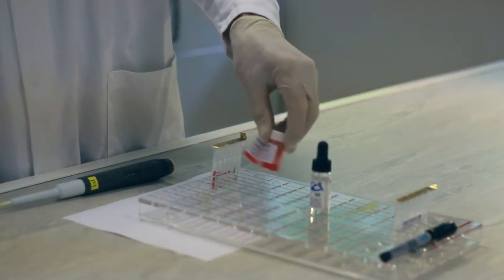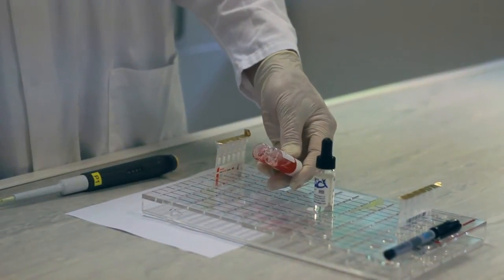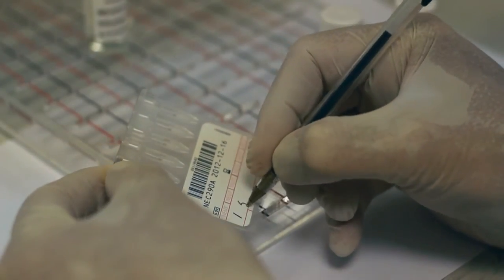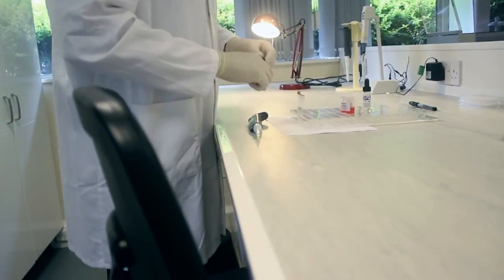To demonstrate the gel card technique, we will be using one positive and one negative sample. Both samples are gently shaken in order to re-suspend all of the cells.